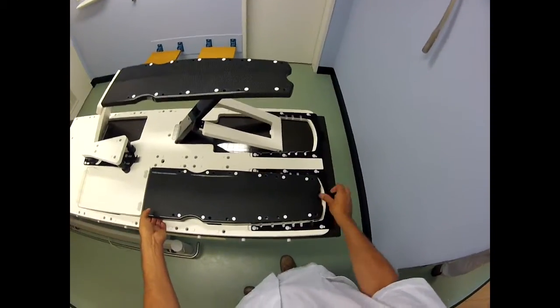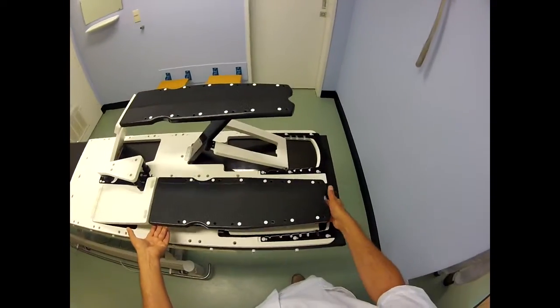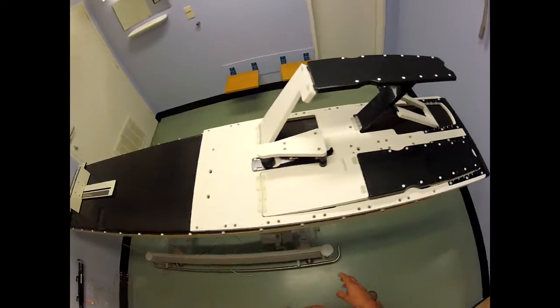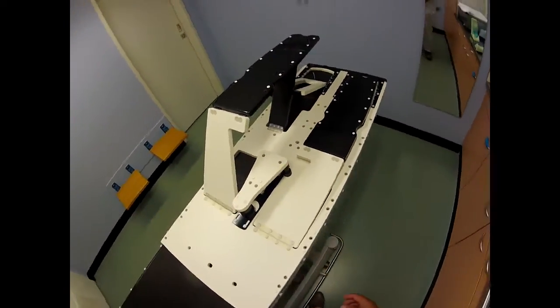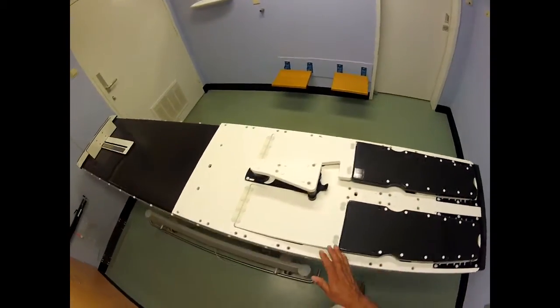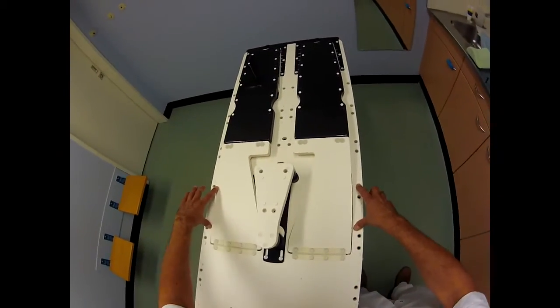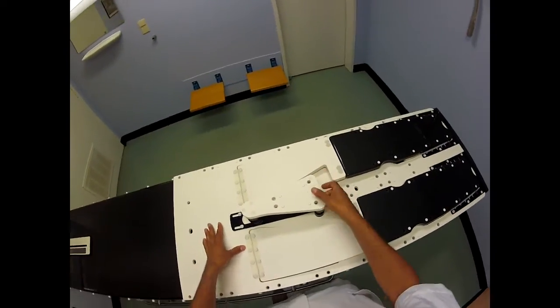The other leg — oops — also. They made all kinds of holes everywhere, so you can even make a pelvis mask on this. We don't use it, but if you want to, you can fix it — I think here, here, and here. And if you don't like this thing, well, you can take it off.